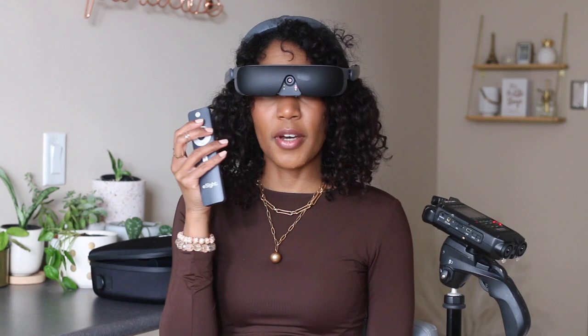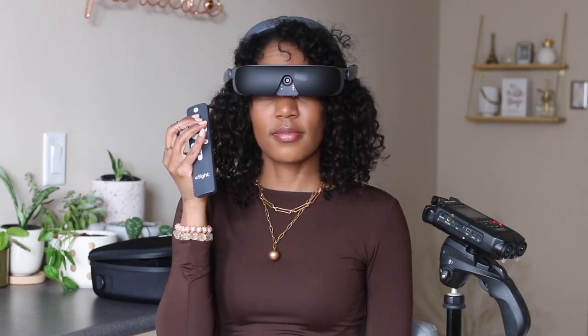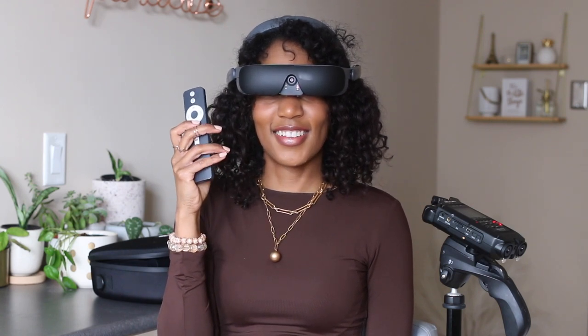The second button allows you to choose your filters, switching to different filter modes. Once you do that, the up and down button chooses — so if you prefer things to have a certain type of brightness and contrast, you just go up and down.